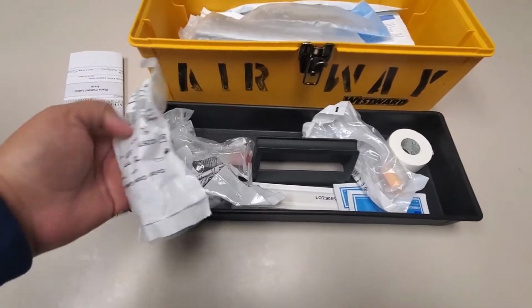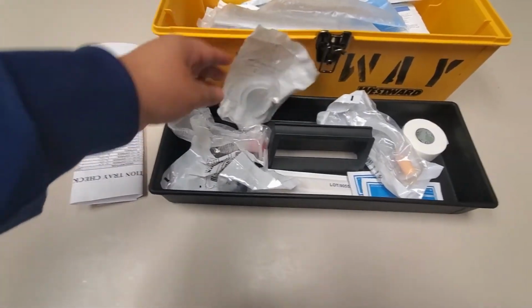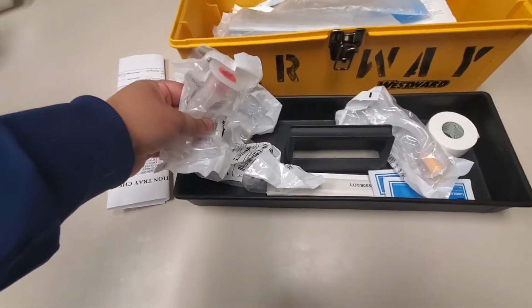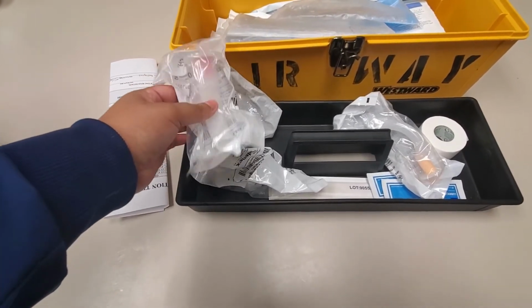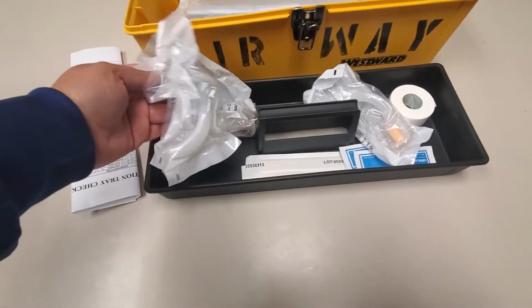So in your Airway Boxes, you're going to have oral airways. If for whatever reason you need an oral airway, maybe it's on a post-op patient that's coming back and they're not sating well, even on a cannula or the Venti mask or whatever, you can come in here and get the oral airways. There's various sizes, so that'll be in there.